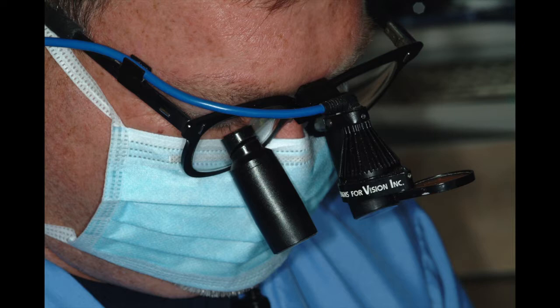One member of our study club can wear 6X all day, but for that to be successful, the convergence angle and the interpupillary distance, the whole thing must be absolutely perfect. The way to judge if your binoculars are correctly aligned is to focus on a page of text and then alternate one eye or the other. If the image jumps, they are not correct. The image should remain exactly the same.